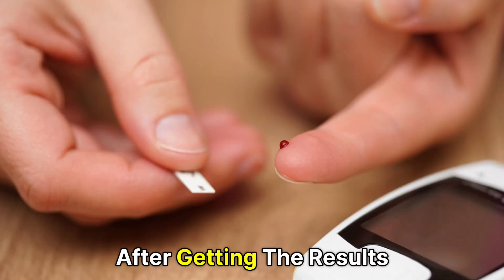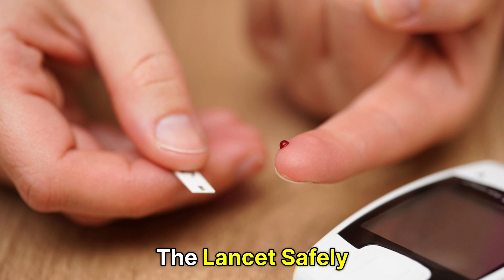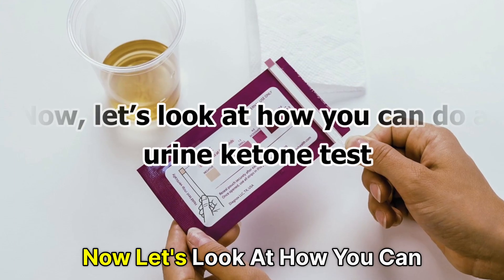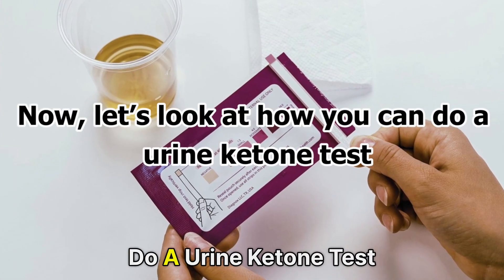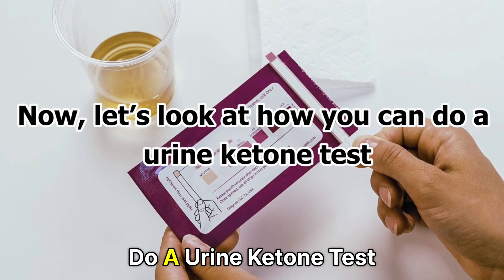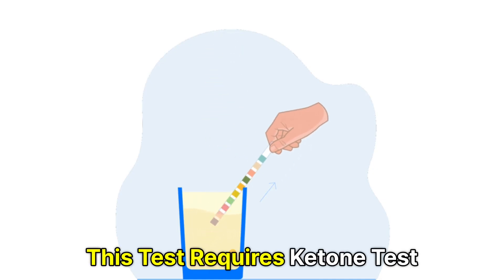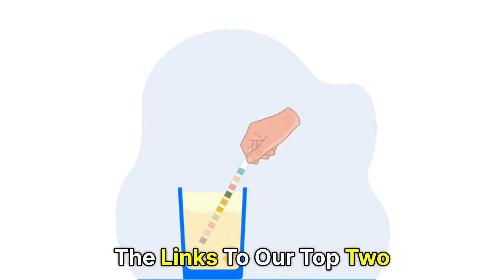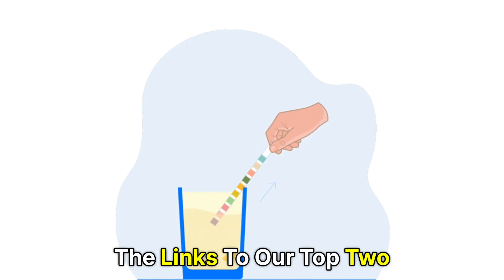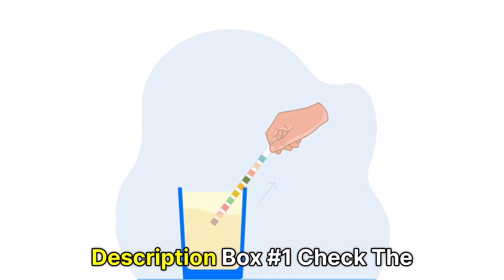After getting the results, discard the ketone strip and the lancet safely. Now, let's look at how you can do a urine ketone test.